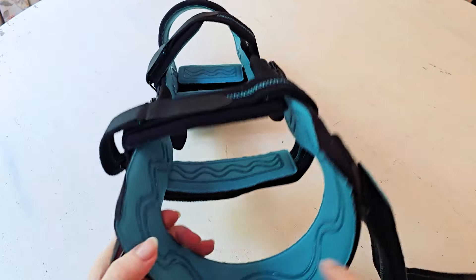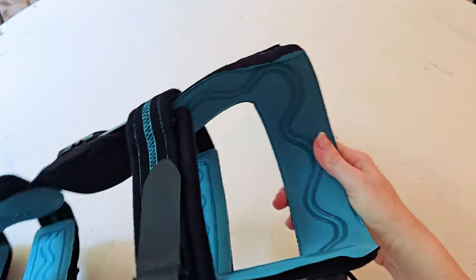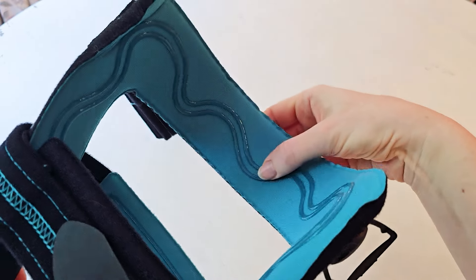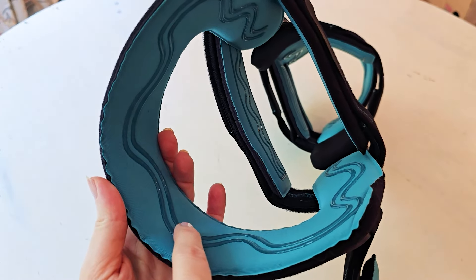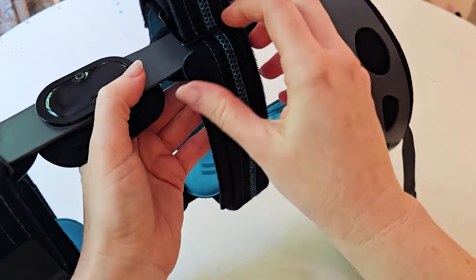You can see how it's broken down into basically four different tiers. All along the inside there's really good padding as well as a silicone weave running all the way down. That silicone design has a little bit of grippiness to it, which really helps keep things in place.